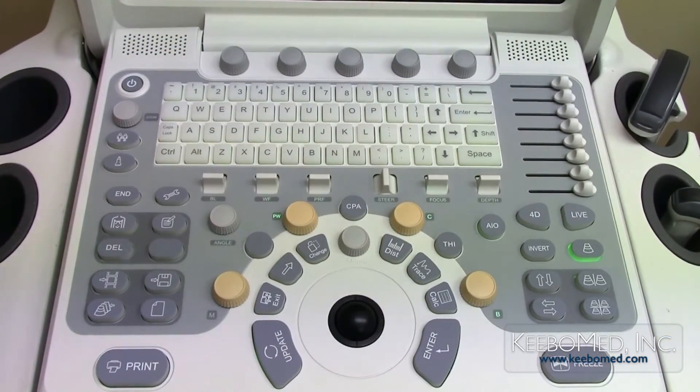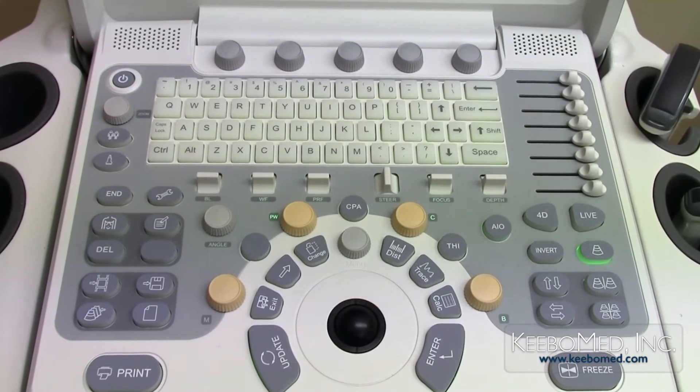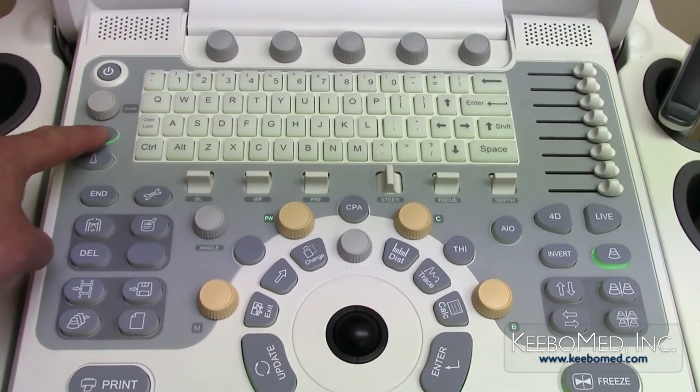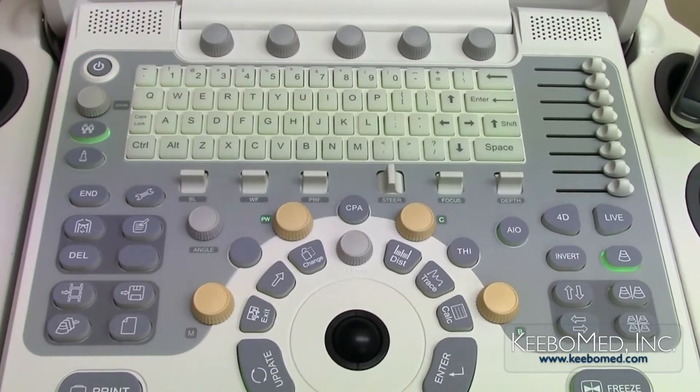To start a new exam, press the end key, then a new patient can be made by pressing the patient button.